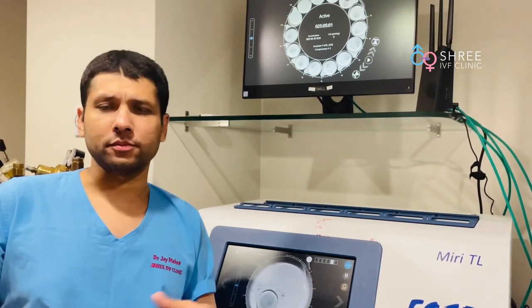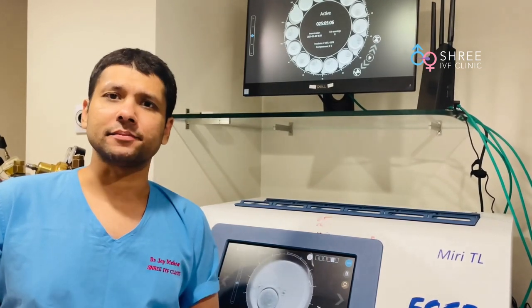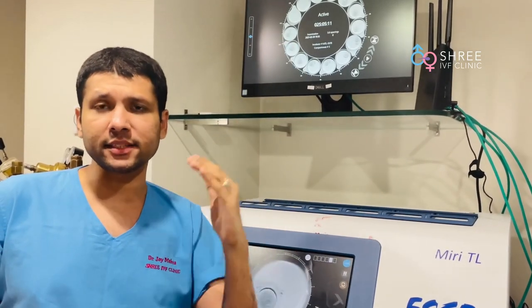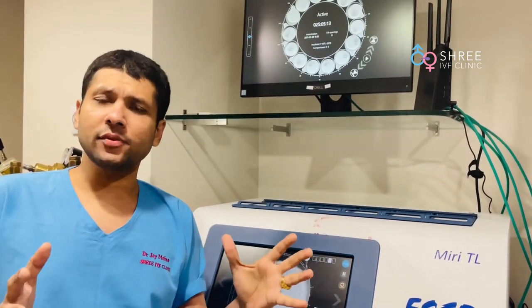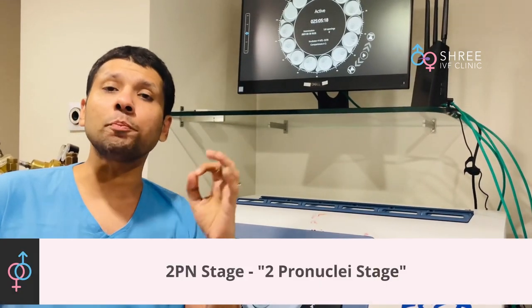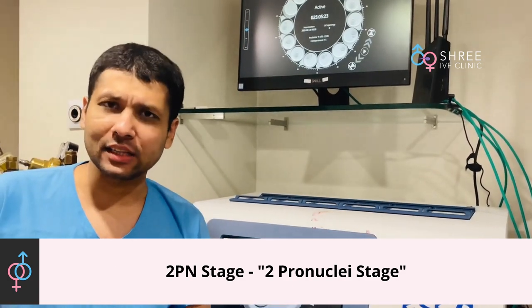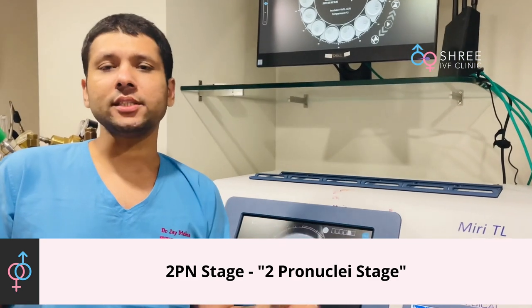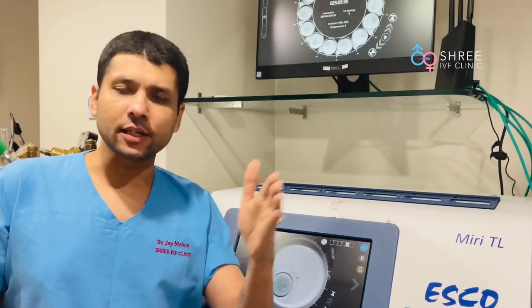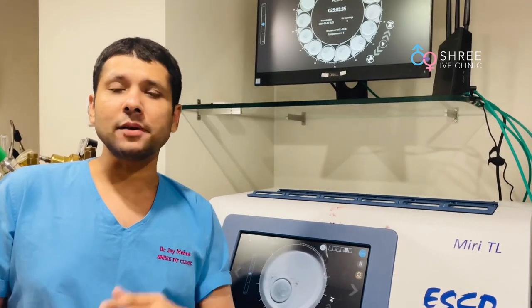The average success rate of IVF is an age-dependent parameter, and if the age crosses 35, the success rate keeps decreasing. In today's video we are going to show you the first part of the journey: something called the 2PN stage, or the 2 pronuclei stage. We want to show this so that anyone undergoing assisted reproduction has some idea of how the embryo develops and what the journey looks like.